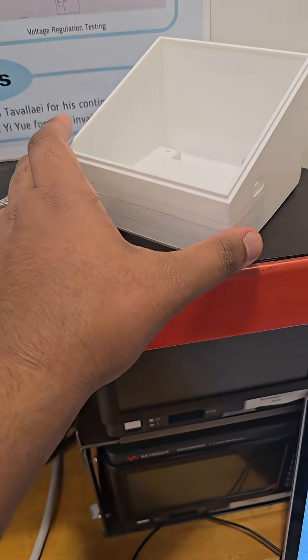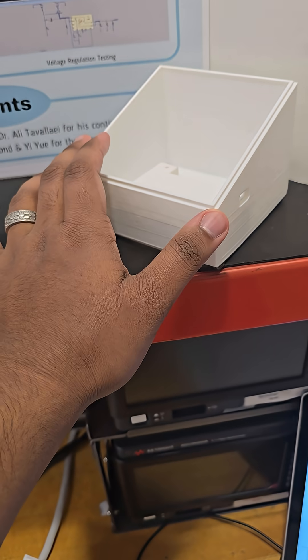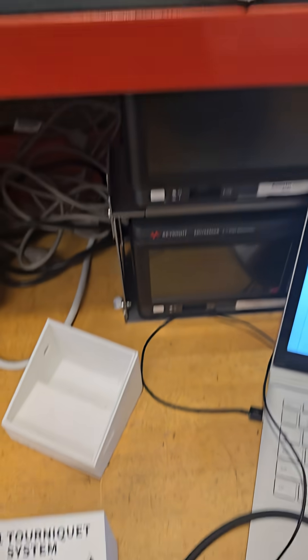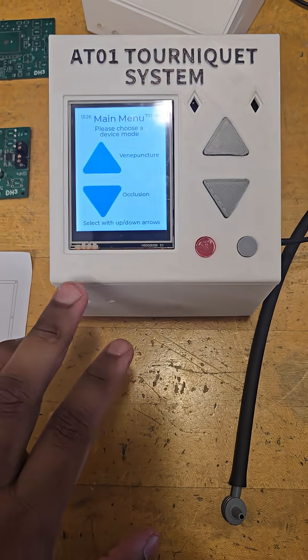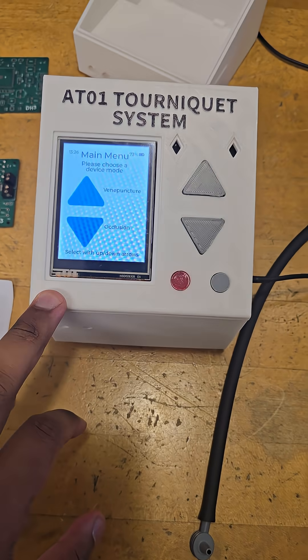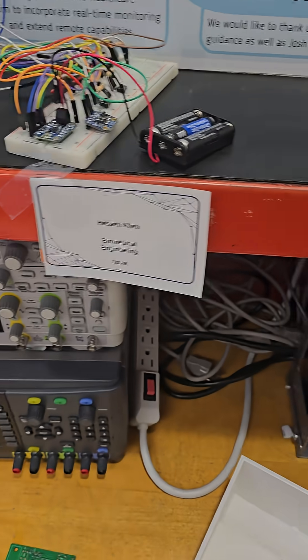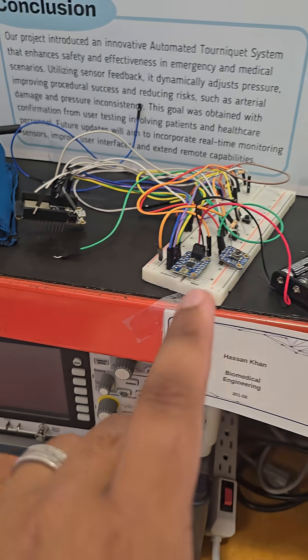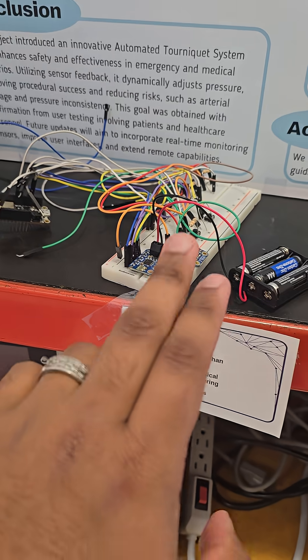Over here we have the initial design for the housing, and what we see in the final device. This is when we actually, just as a proof of concept, used a breadboard to implement the design.